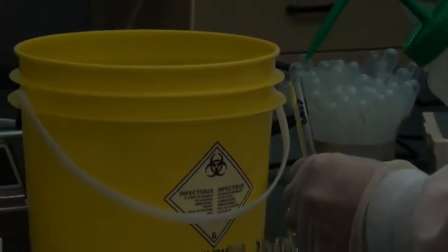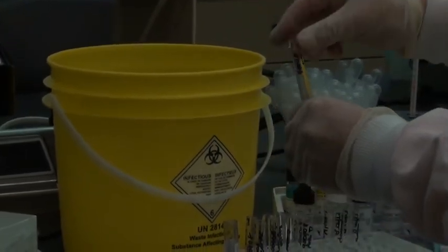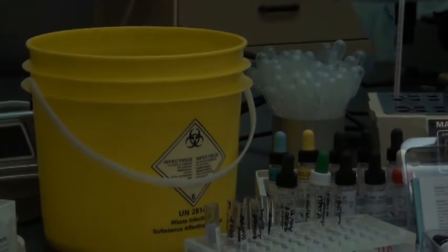Let's give it a shake so that we're prepared to do another wash. We need to do 3 really nice washes like this prior to adding anti-human globulin. So forceful addition of saline. And this one's ready for its second wash. You need to do that with each of the tubes.